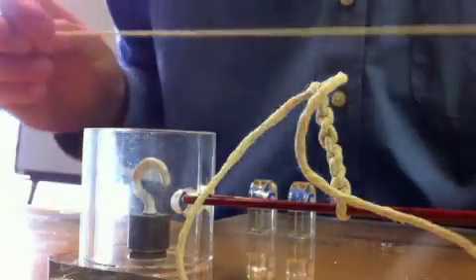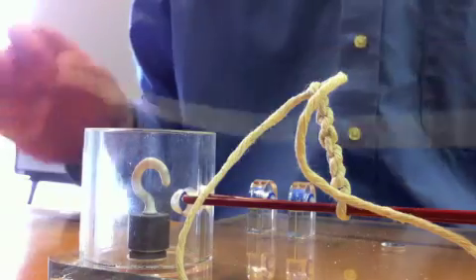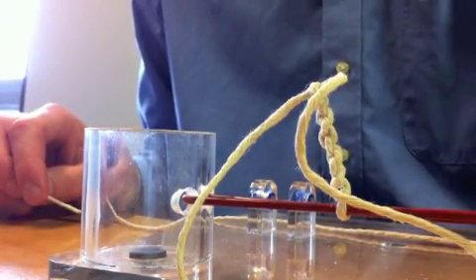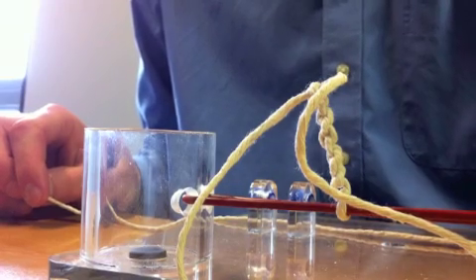For more of a challenge, try tying a reef knot in a glass cylinder with a hook. The hook comes out quite easily, so this means that the tension must be applied correctly so as not to pull the hook out.